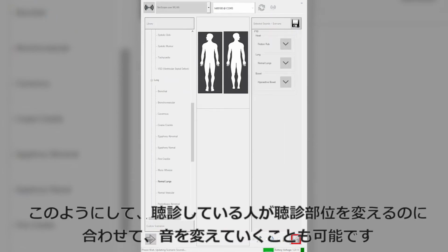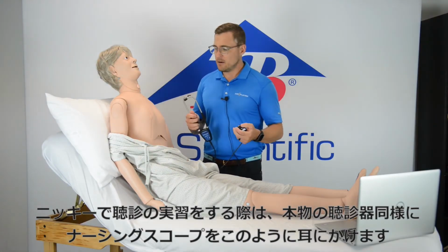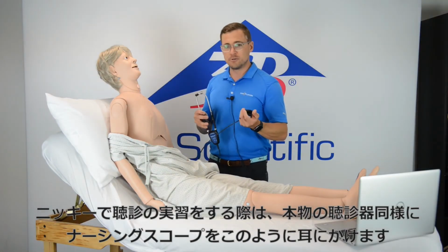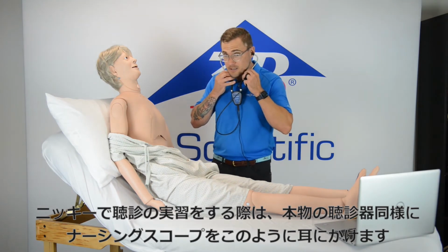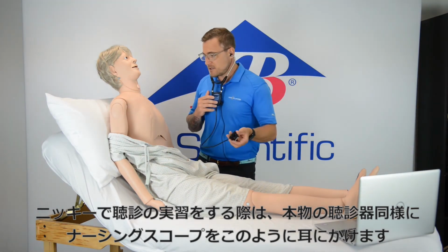So this can be done real time as the student is going from one area of the body to the next to ensure that the student is getting up-to-date sound and information. With Nikki, again, simply what we're doing is the student will put the stethoscope into their ears just as they would with a real stethoscope.